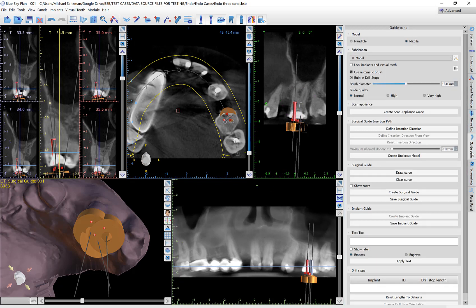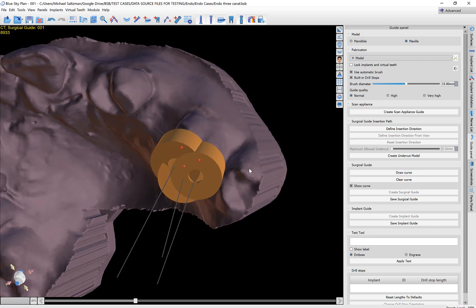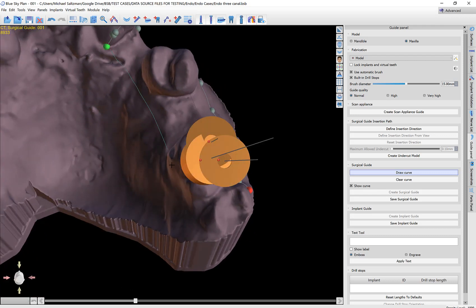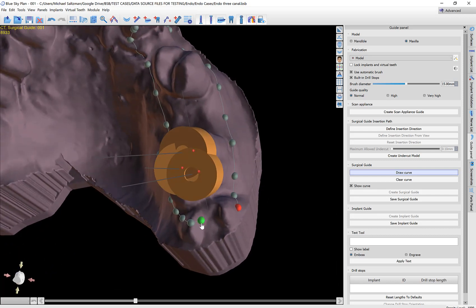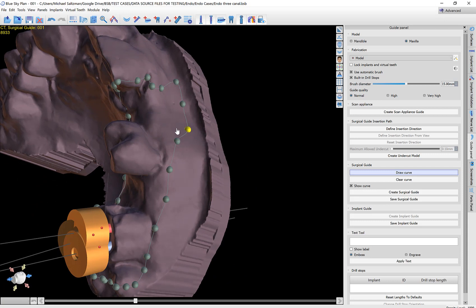Now I'm going to switch over to the guide panel. Click Draw Curve. As usual, hold down the Shift key and use the left mouse button to grab and drag to draw our curve, taking it back to the starting point. To rotate the view, use the left mouse button to grab and drag; to draw the curve, hold Shift and grab and drag. We can verify the curve and make any adjustments necessary.